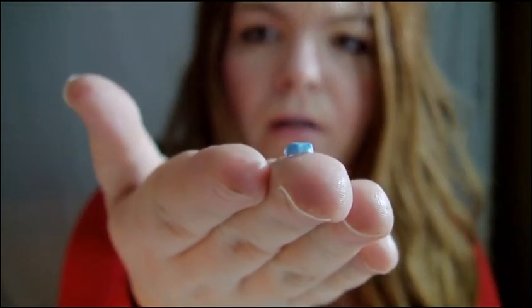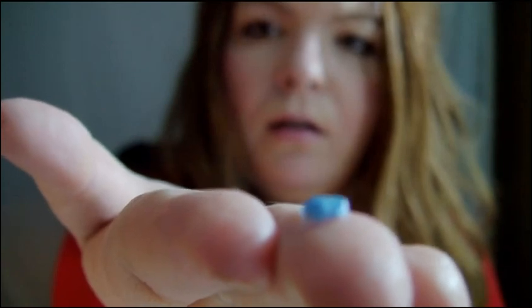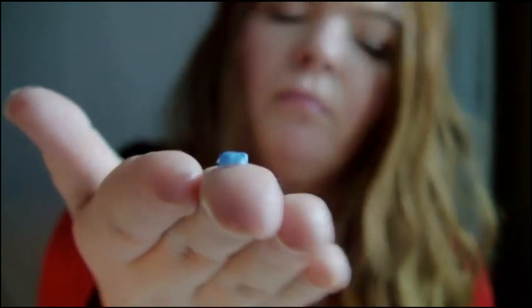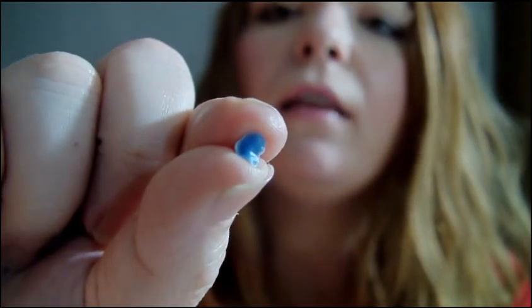It's really small — you can tell right there, my hand is shaking. So that's what it looks like, and mine's blue. You can kind of see what the inside of it looks like, which is the impression of what your tooth looks like. It's something that will come off eventually. They said it's fine if I don't have it on, because as long as my other one's on, it's fine. That's kind of weird, because you'd think it's put there for a reason, but whatever.